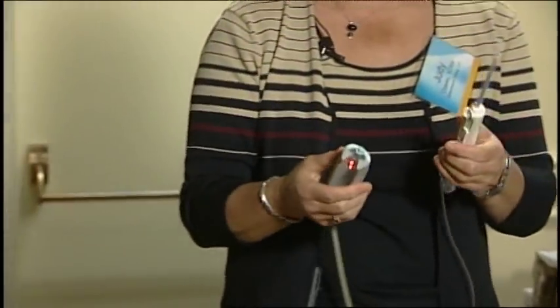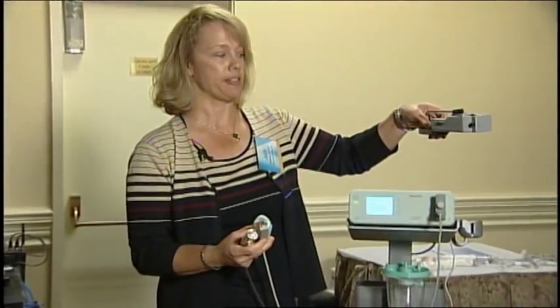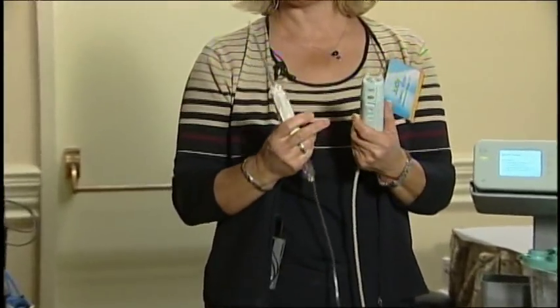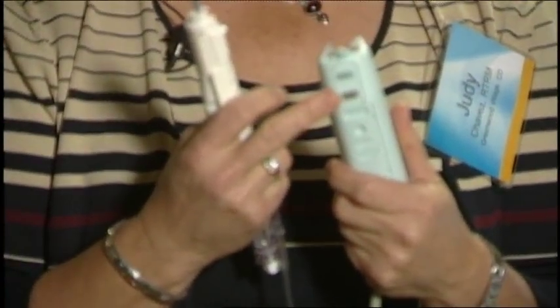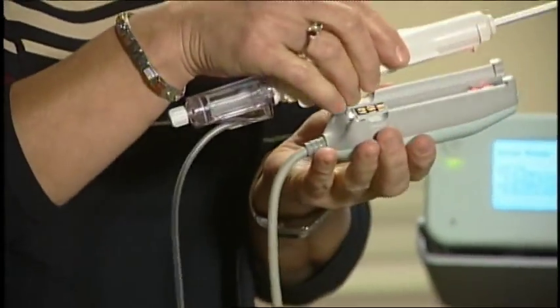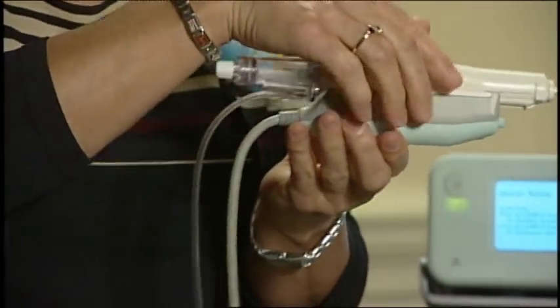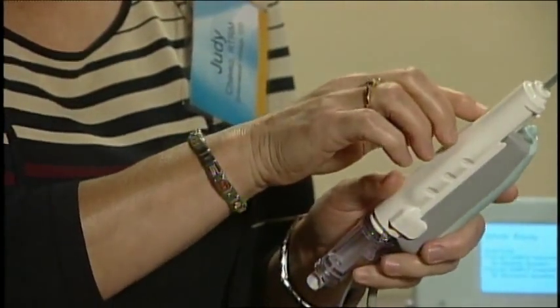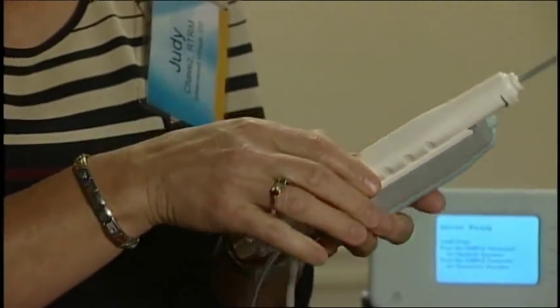I'm going to show the setup for ultrasound. We'll spend some time in the workshops on the stereo, as I brought the fire-forward mechanism. When you go to initialize, always use the handheld for ultrasound and the foot pedal for stereo. You want to make sure that when you introduce the probe, it's seated correctly.